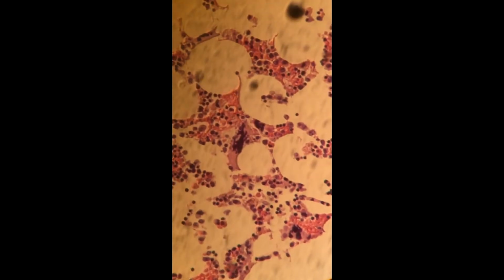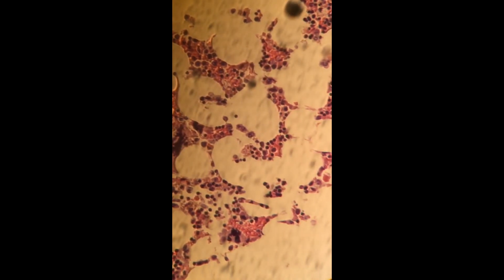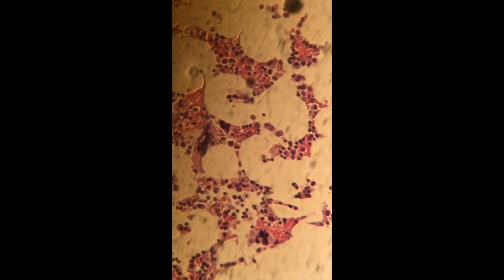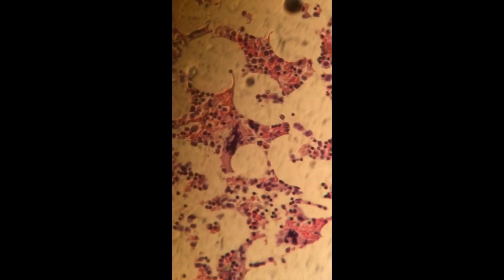Very nicely done here. I'm going to raise the light a little bit just to see if we can, I don't know if the light's going to come up any better than that, but that's some pretty good stuff there. But anyway, a good morphologist will be able to determine what I'm trying to show here.